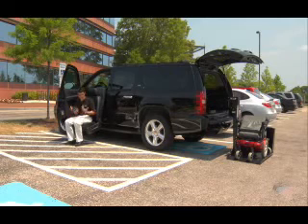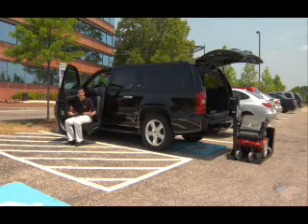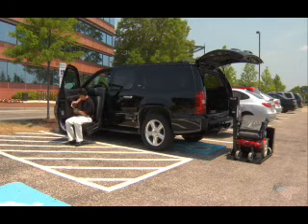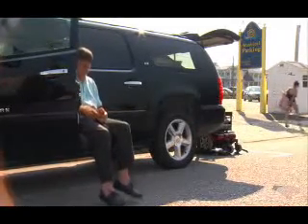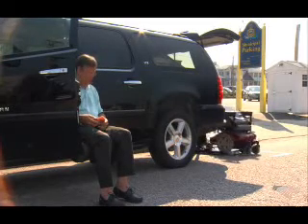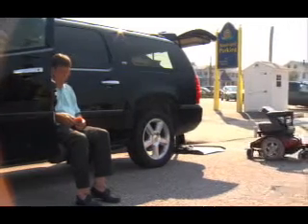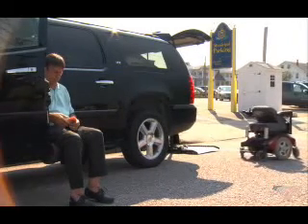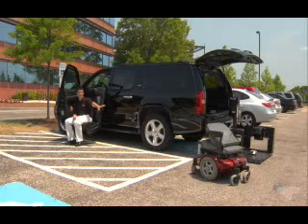So if I were sitting in the Freedom seat right now and I wanted to get out of my car, I wanted to get into my chair, I use my controller over here and I push a button. So while the chair is not in my line of sight, it's self-navigating off of the lift platform via a laser guidance system, and it rotates itself and presents itself to me.